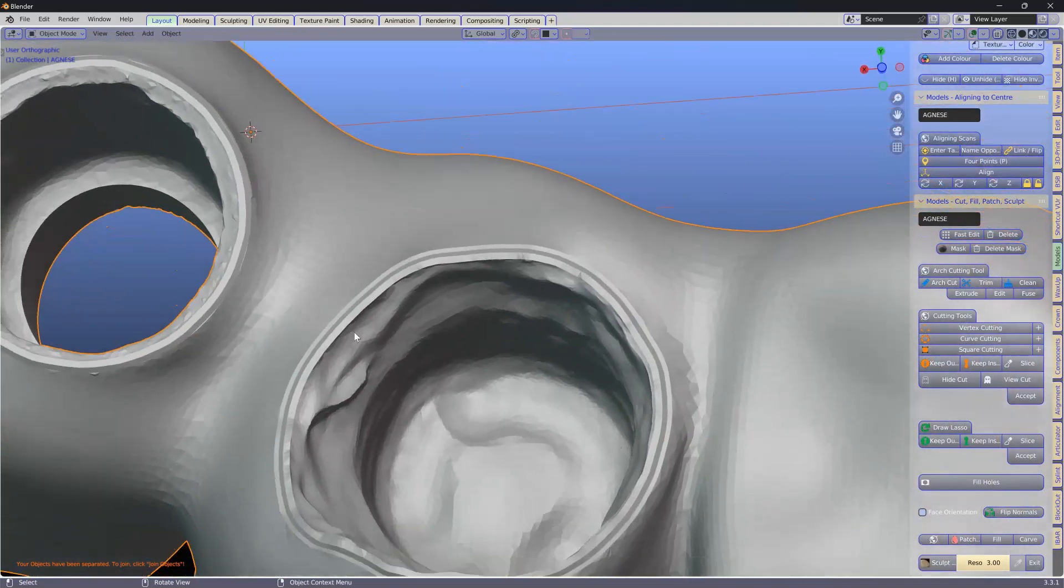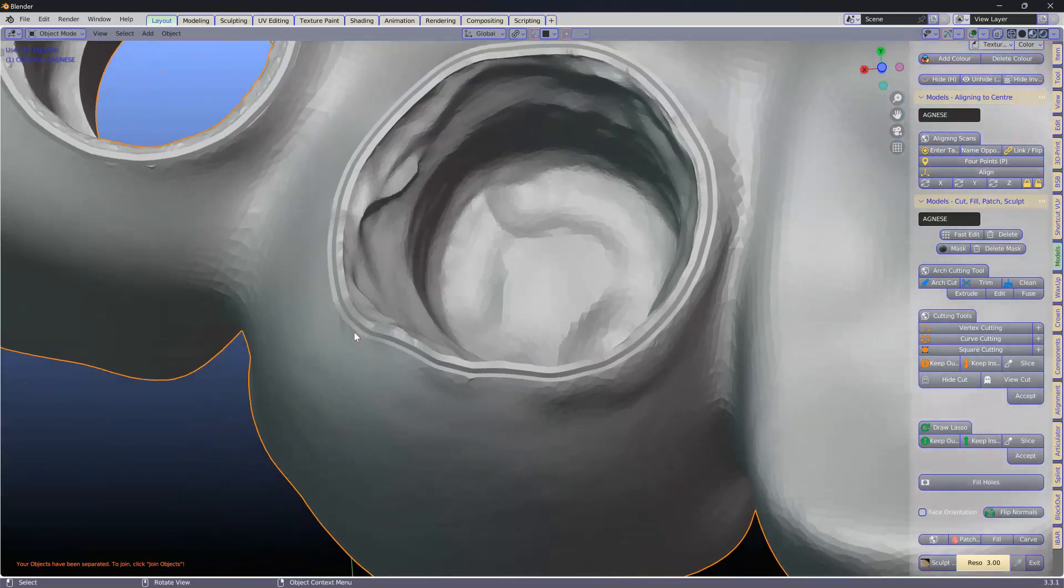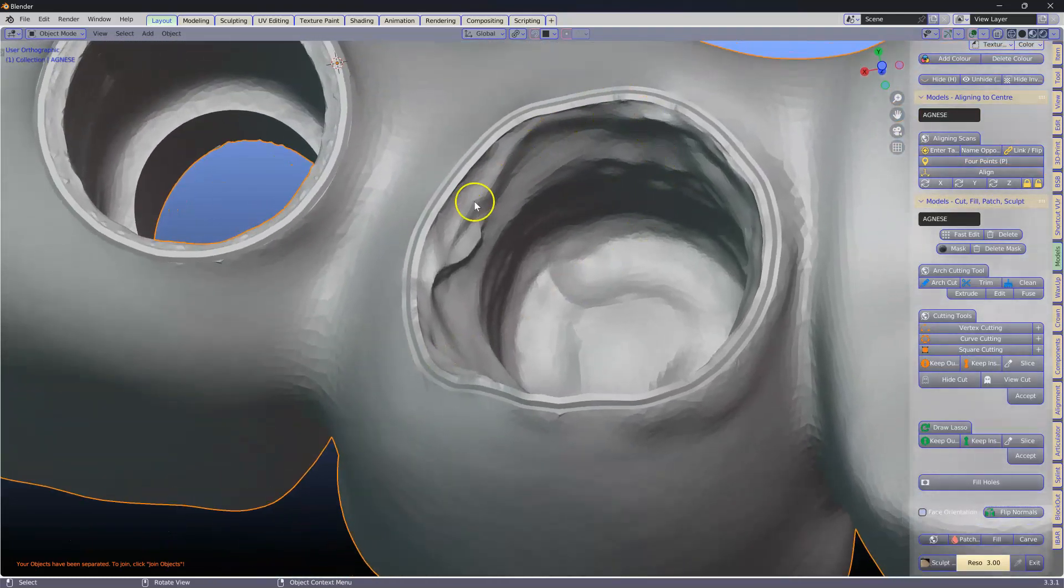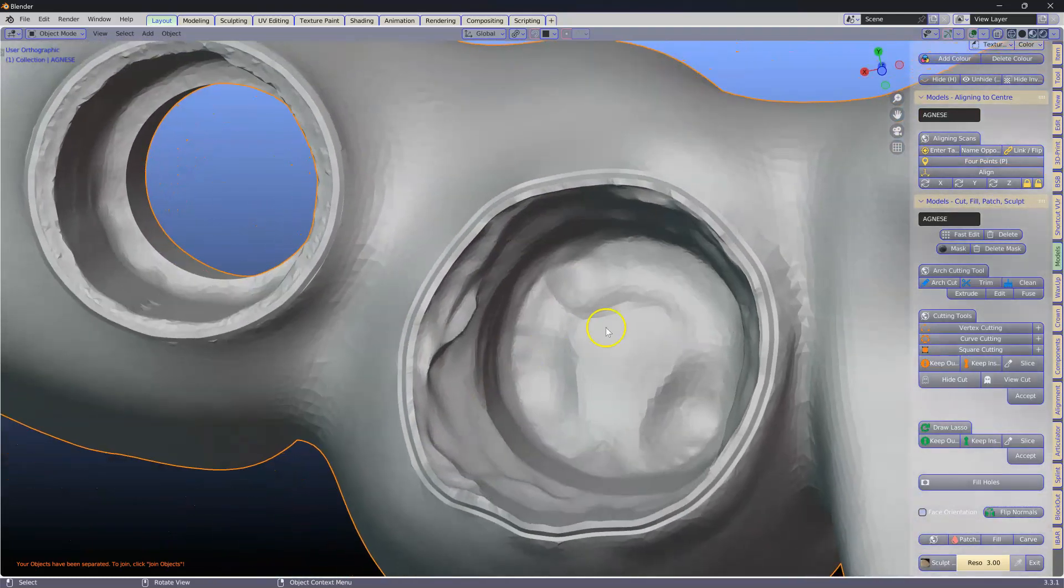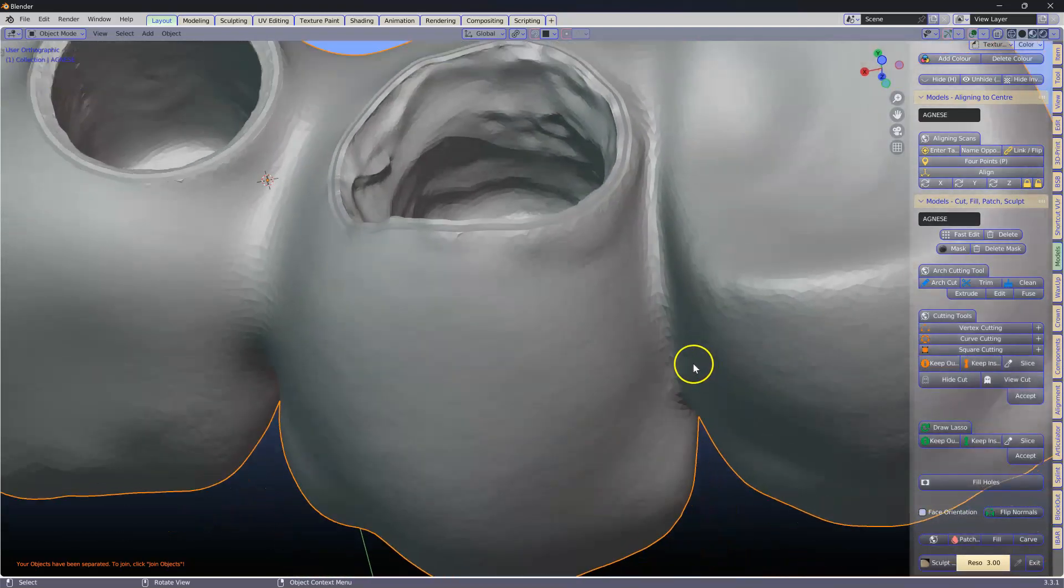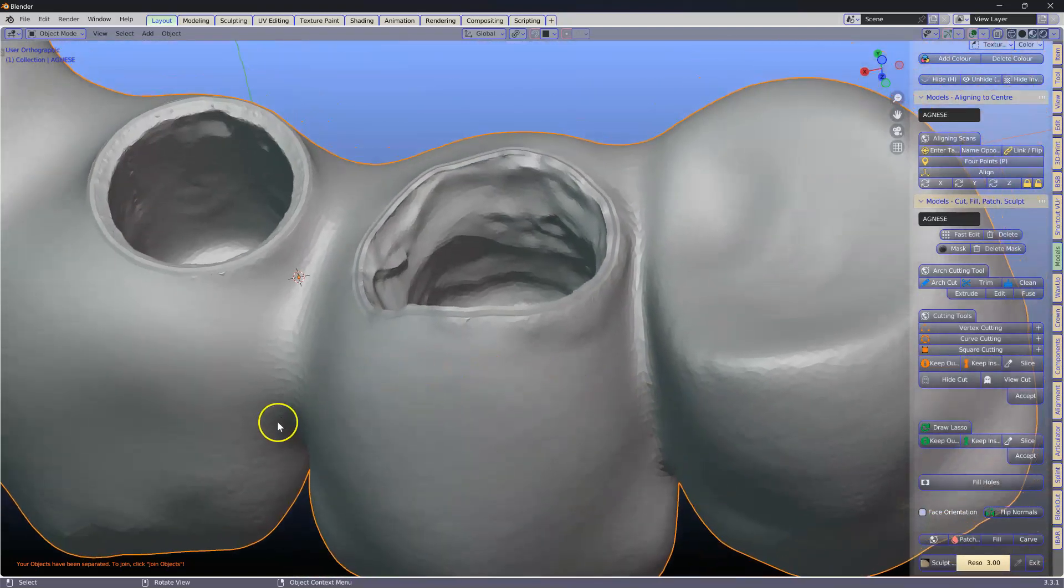Now I hope this helps. This is how we can unify these ExoCAD meshes to the hybrids.